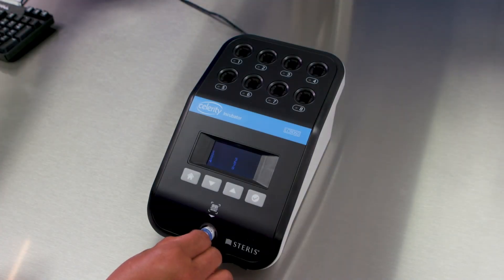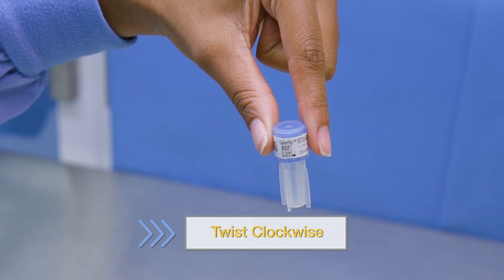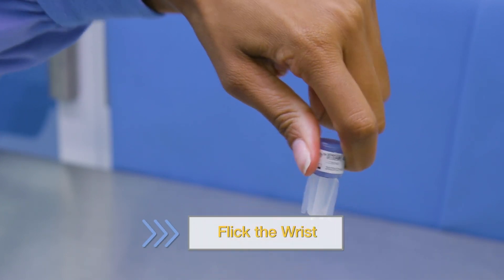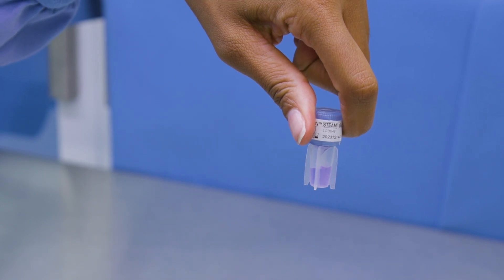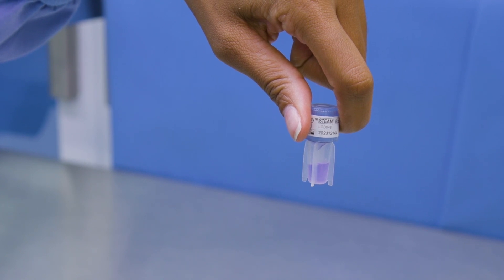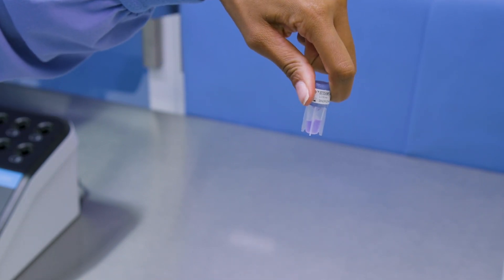Scan the BI using the barcode scanner on the incubator. Then activate the BI by twisting the cap clockwise until resistance is felt. Transfer the media from the cap to the vial by holding the BI firmly by its cap and flicking the wrist once — the media will be purple. Ensure media has come in contact with the spores on the bottom of the vial and the cap is seated tightly. You may need to retwist the cap or flick the vial an additional time if the media did not transfer.